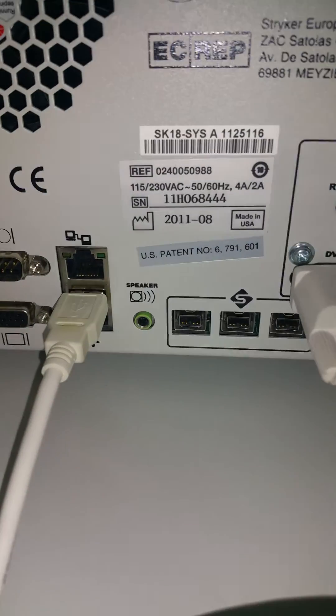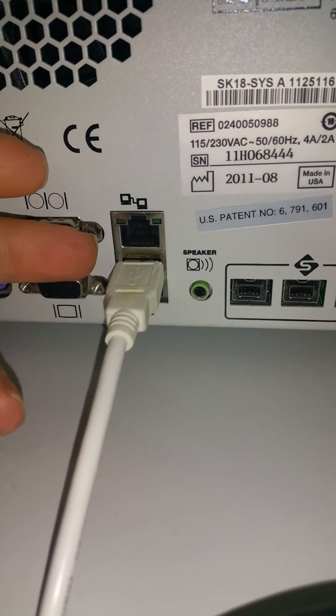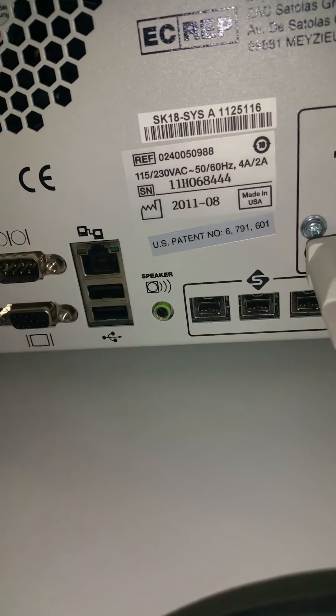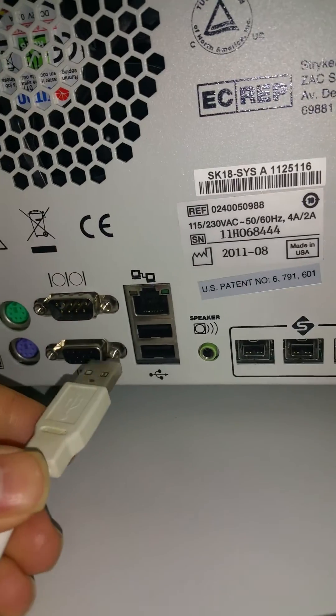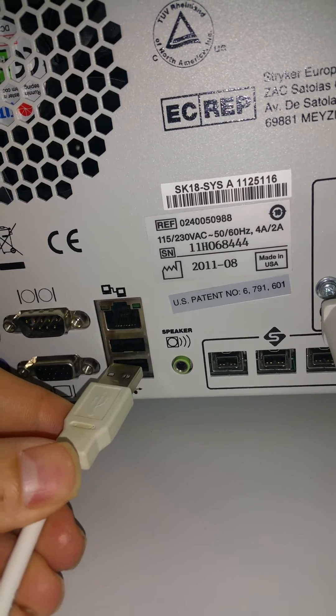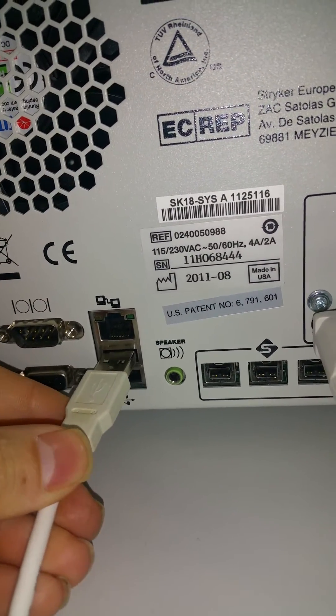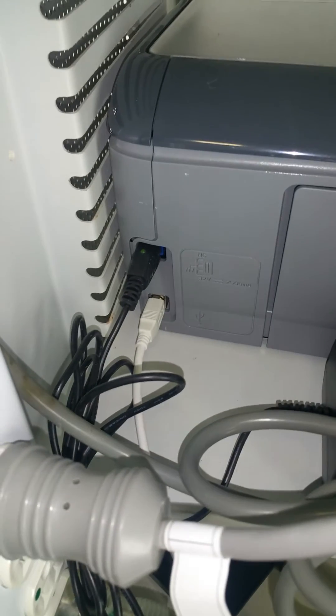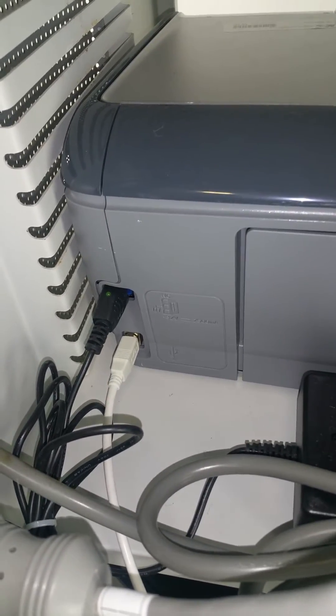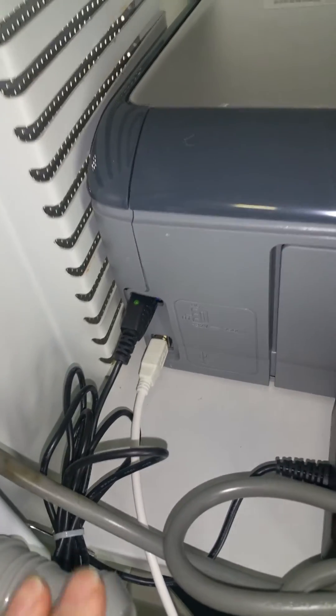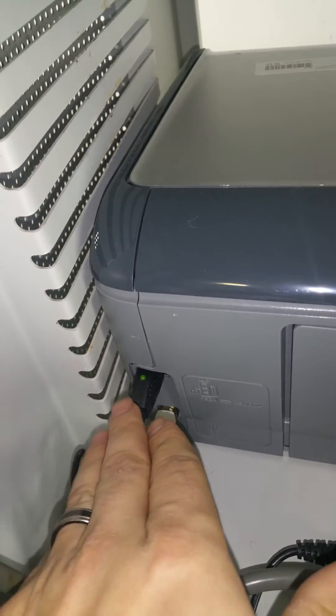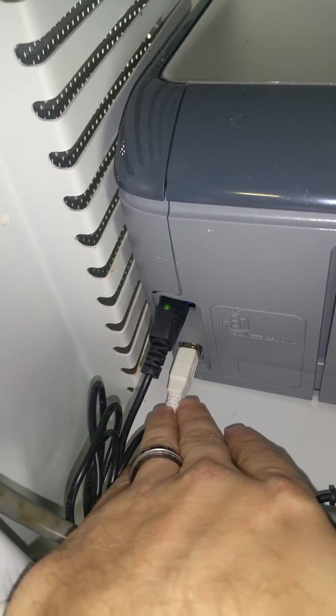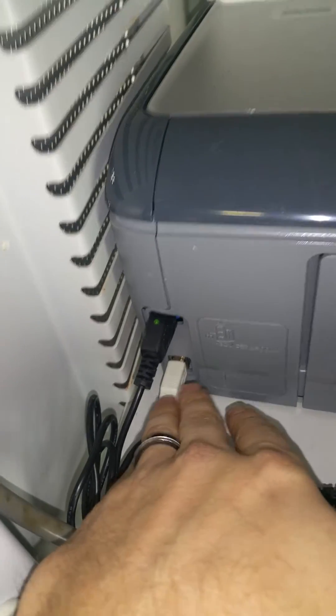Over here you have this AB cable and this is actually your printer cable. So I have it plugged into this particular slot on the back of the SDC. As far as I know, you could use either one of these USB slots, but I always use the top one and it always seems to work for me. On your printer, your printer should have basically just two places to be plugged in at. One of them being the power cord and then the next being the AB cord that attaches it to your SDC.